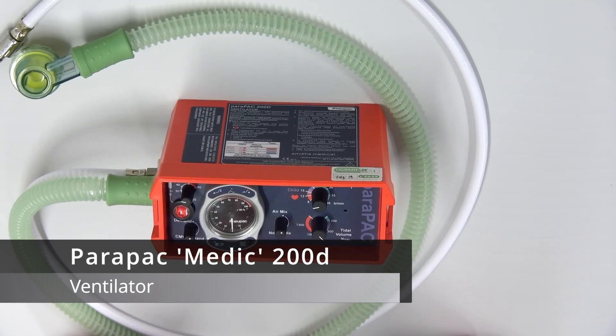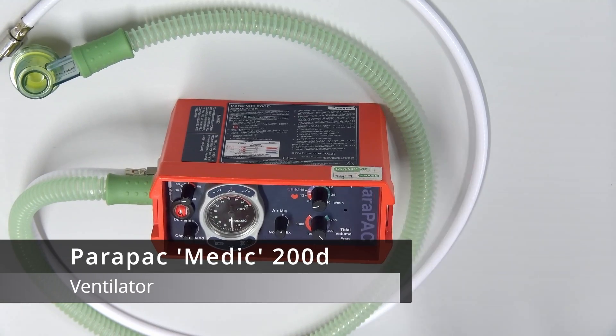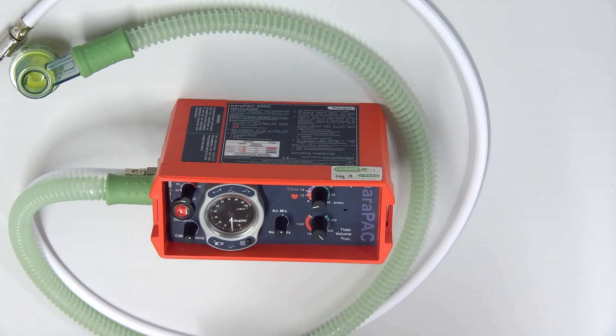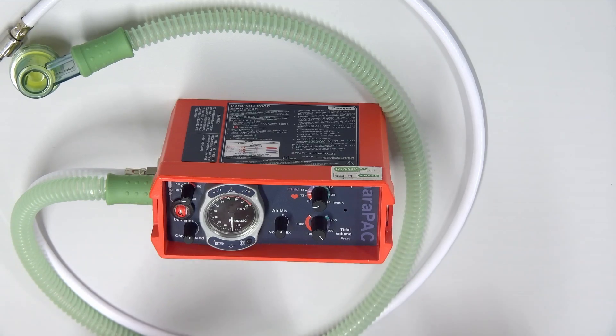Hello and welcome to this Parapack Medic 200D instruction video. Today we're going to be talking about what all these connections are, all the outside, where things are, what they do, and when to use this and maybe when not to use this, as well as some of the limitations of this ventilator.